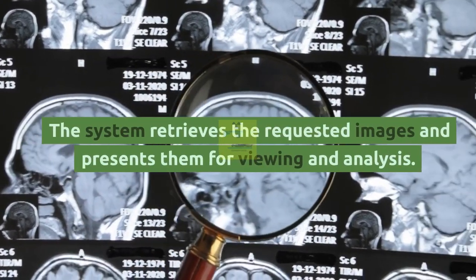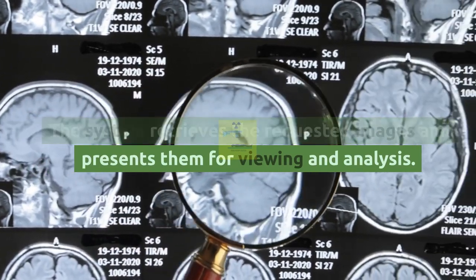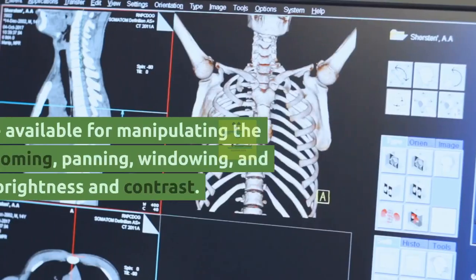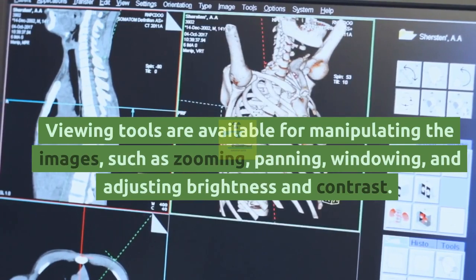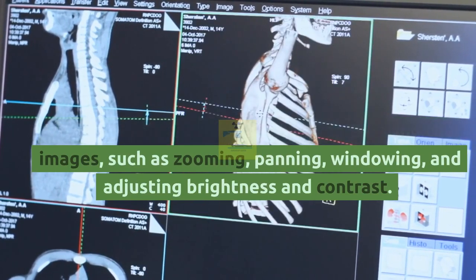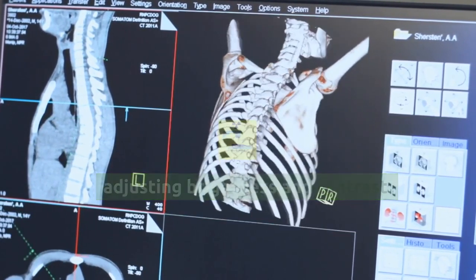The system retrieves the requested images and presents them for viewing and analysis. Viewing tools are available for manipulating the images, such as zooming, panning, windowing, and adjusting brightness and contrast.